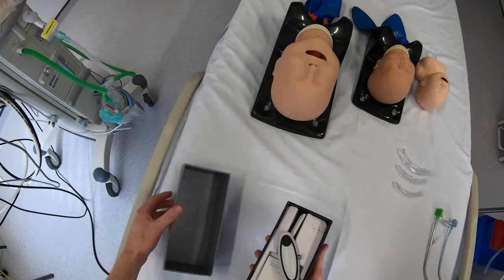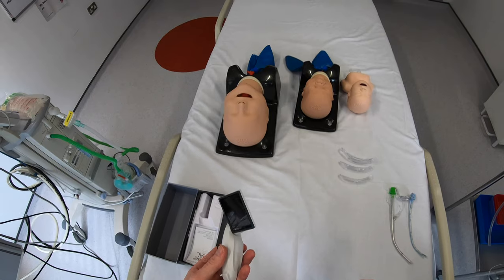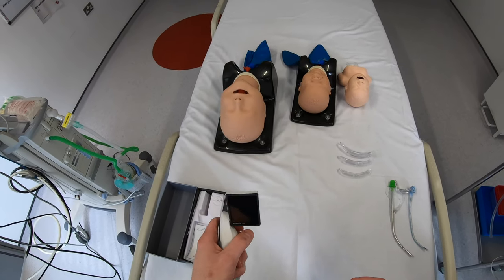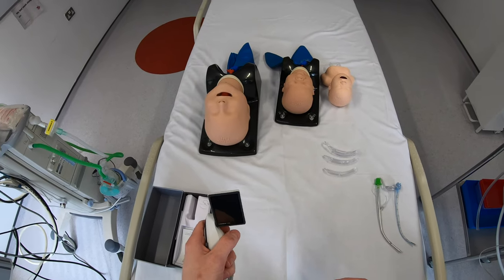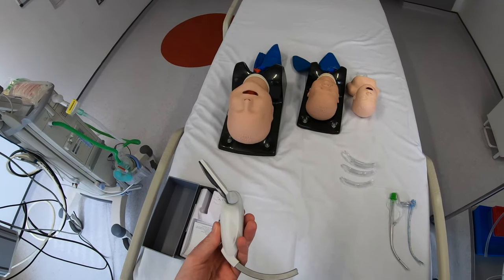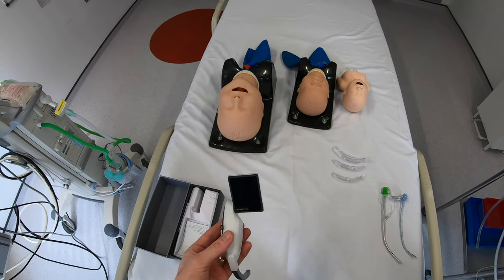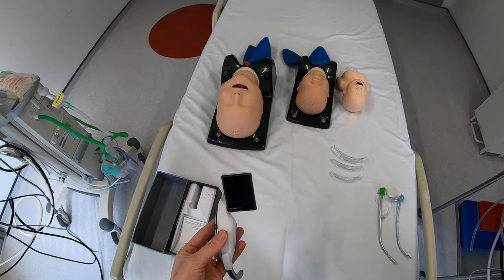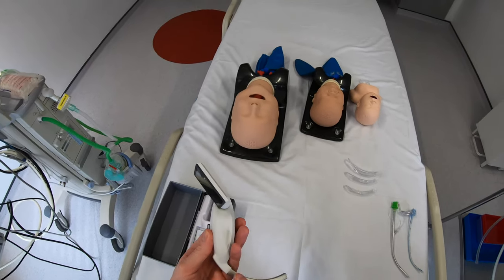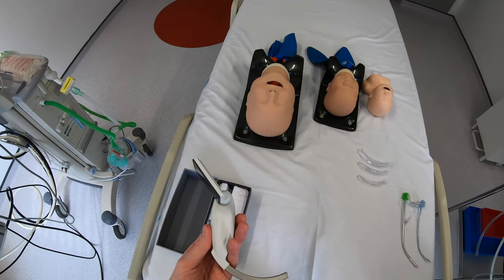Taking it out of the box, one of the first things you notice is just how small and compact the device is. It's fairly light and well balanced in the hand, and one of the nice things is that you just have one device — one version used to intubate from neonate to large adults. You don't need a different device depending on the age of the child you're looking after.